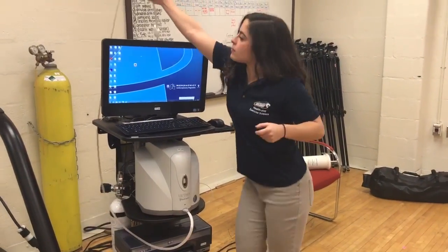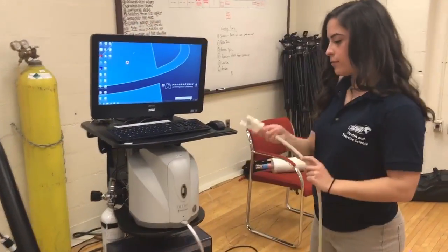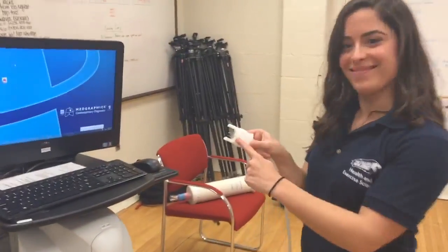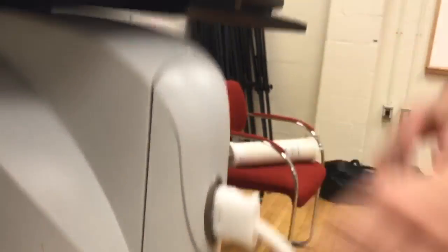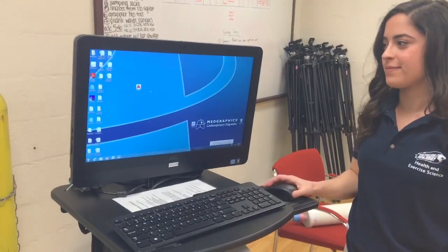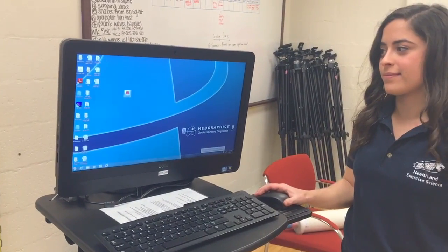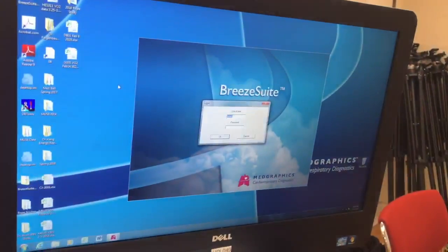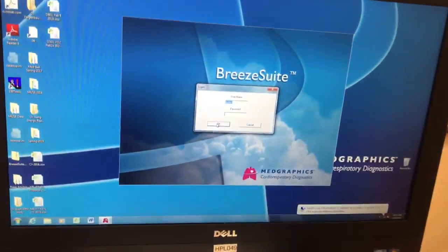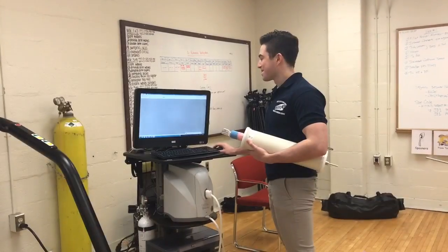Next, insert the umbilicus into the cart making sure the ridge is facing left. Now you can open the Breeze application on the desktop. Hit OK and hit back on top, and now you have to wait two more minutes.